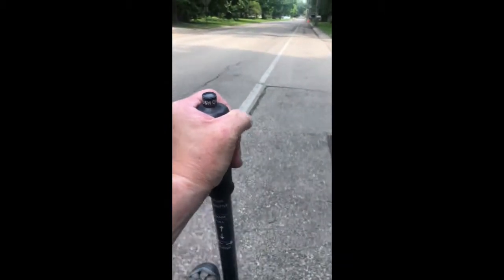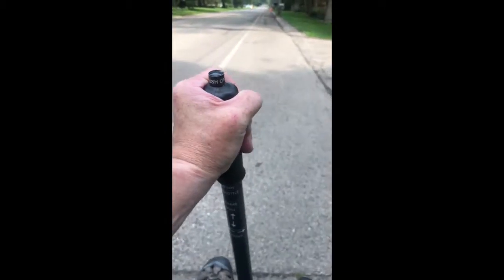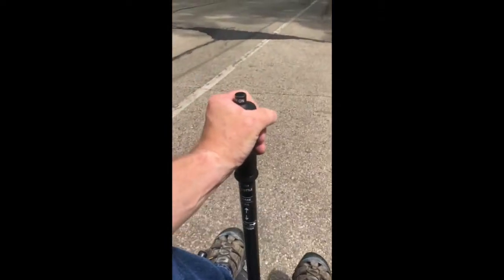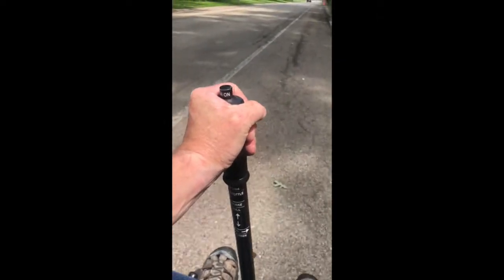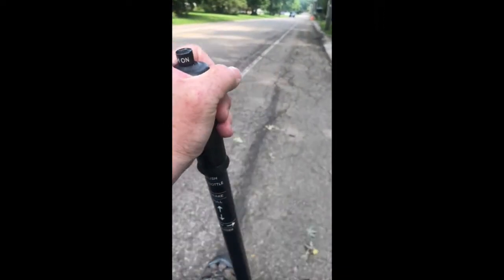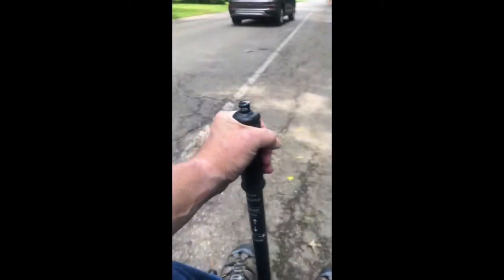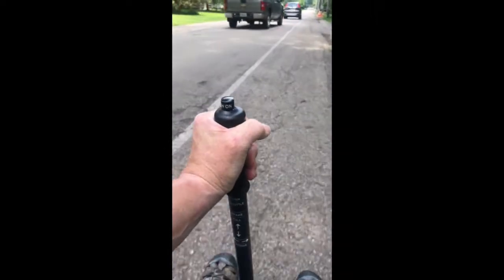It takes a discerned effort to push this thing to go at speed. It's happier at really slow speeds, I think. In indoor functionality, it takes next to no force at all to make this thing go. But at higher speeds, when you allow it to build up momentum, it's automatically going to fight you and not let you go faster than what you've set. Low speed — very minimal, nominal effort. But she'll wake you up if you perturb her too fast or too violently, which is good, because it keeps you honest and not let yourself get out of control.